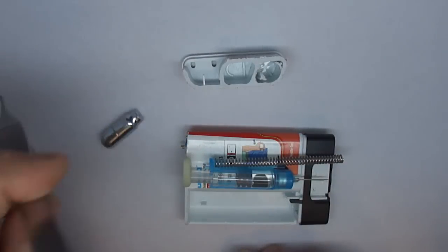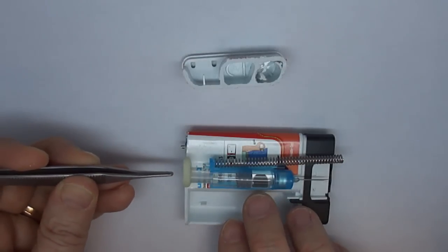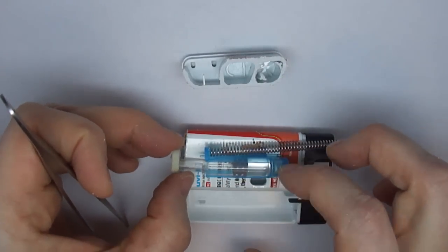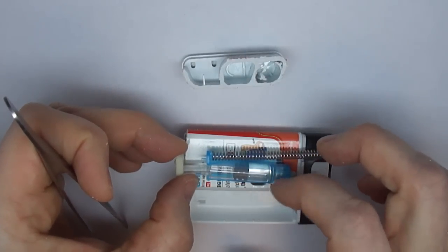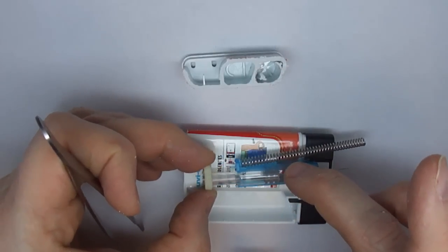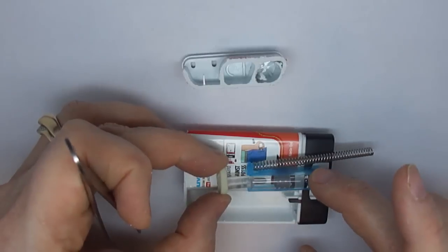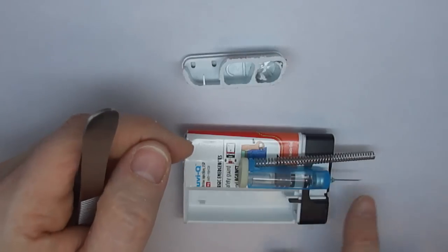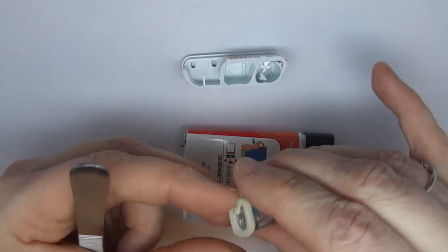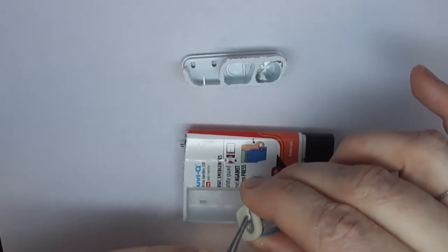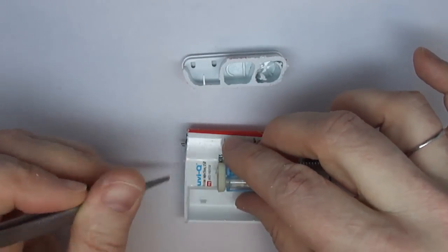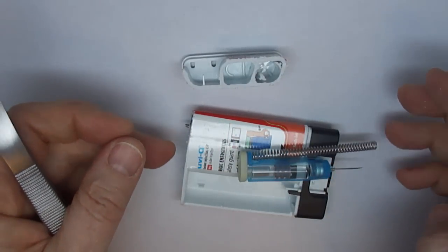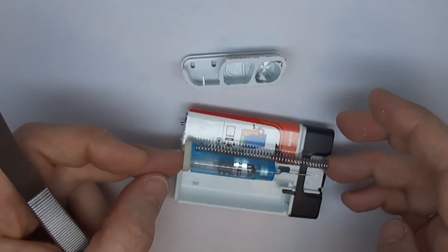And when that pressure from that CO2 comes, the first thing it will do is, remember there's pressure against it here, and I suspect there's probably some kind of seal here that takes some pressure to release. So I think the first thing that happens is it pushes down until it can't push anymore, so that it pushes the needle out. And then the additional pressure pushes this little piece of plastic down inside and ejects the appropriate amount of medicine. And then when it gets all the way down, it pokes a little hole here, releases this little stopper valve that's been blocking this off, and then the gas can release and come up into this top section. And that means there's a lot less pressure pushing it to hold the needle out. And it's now not overcome by the spring, so the spring action can then push the needle back up into the device.